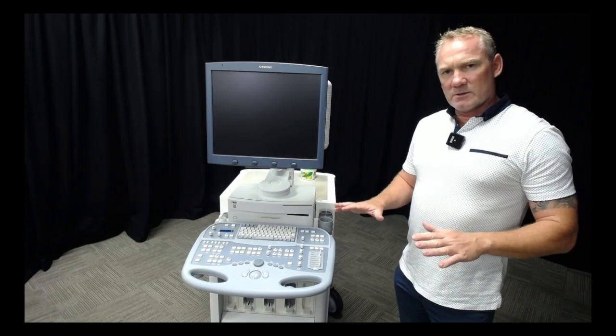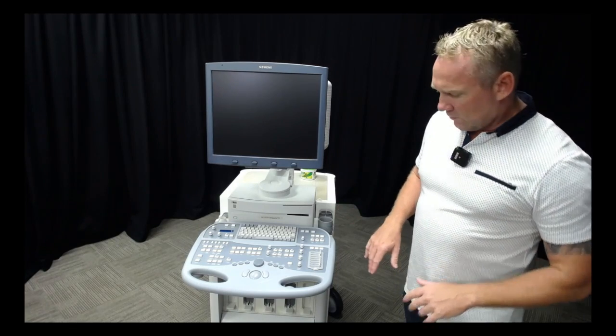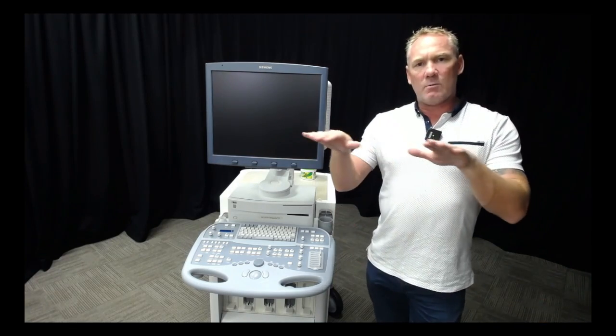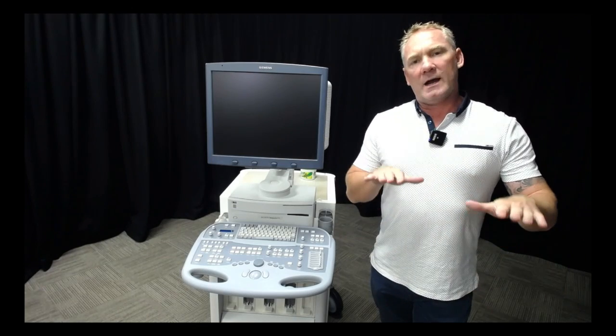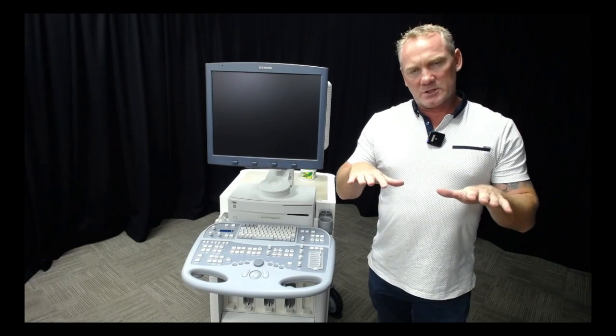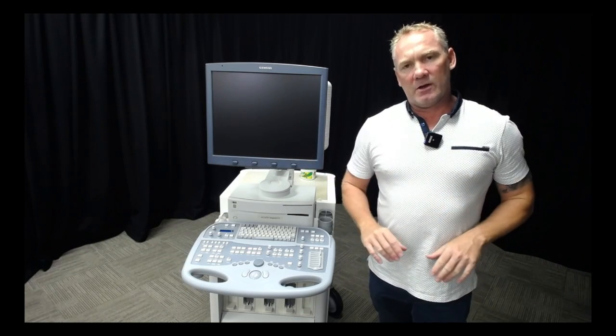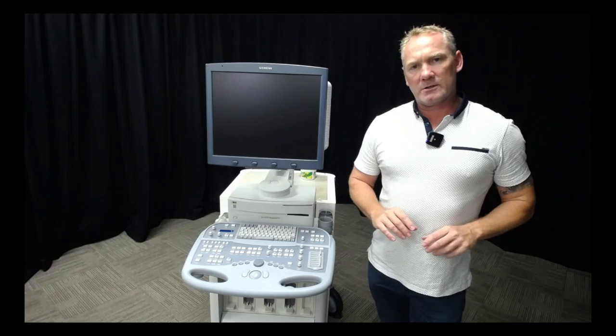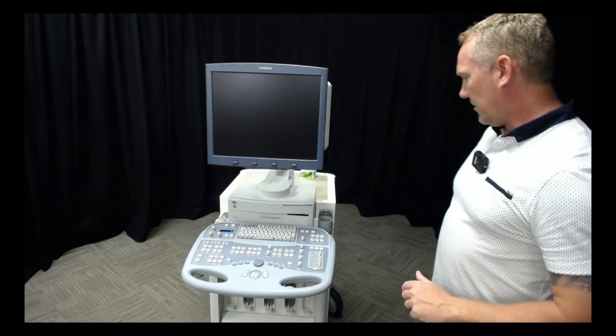Walking down the corridor to get to the room here, I had the rear wheels locked for two-wheel steering rather than four-wheel steering. I still was crab-walking along the corridor where I had to push the machine on a diagonal even though the rear wheels were locked.